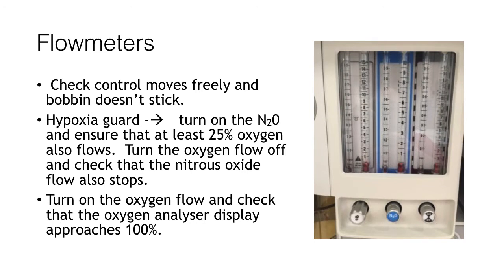Next, we should check the flow meters. The flow meters indicate gas flow rates of the medical gases that we are using — pictured here are oxygen, nitrous oxide and air. You should check each of the dials individually and ensure that they move freely and that the bobbin inside the flow meter moves freely and also doesn't stick.